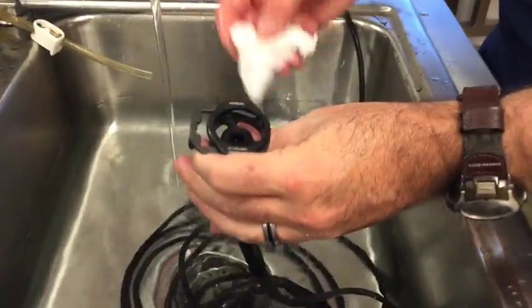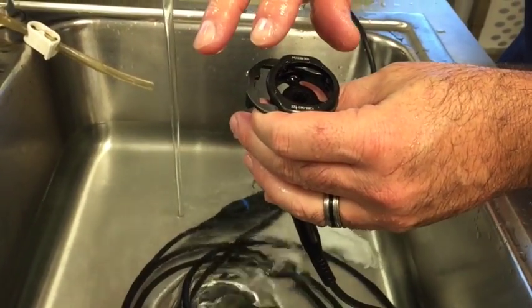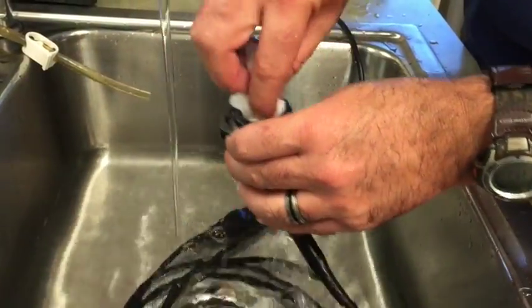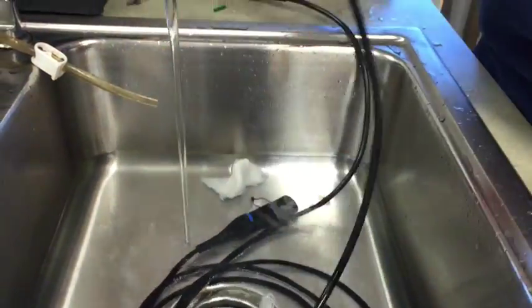So this camera — you want to make sure you get that lens, because the ETO can leave a little film built up there that you won't notice after one or two times, but after five or six times if you don't rinse it well. So you want to make sure you can get that with a sponge, as long as it's a nice soft one.